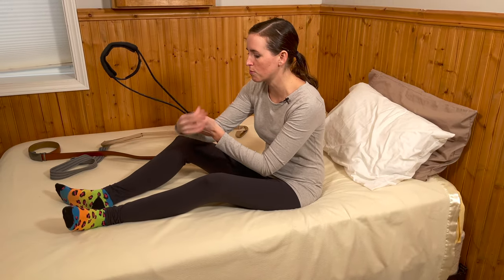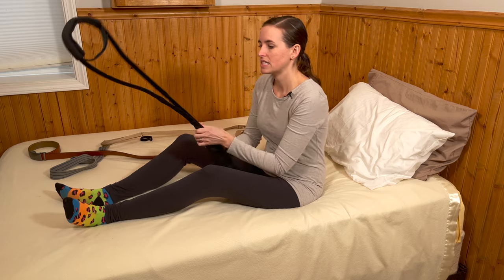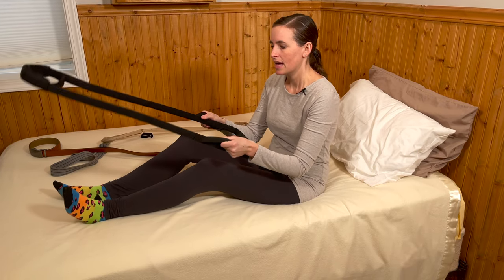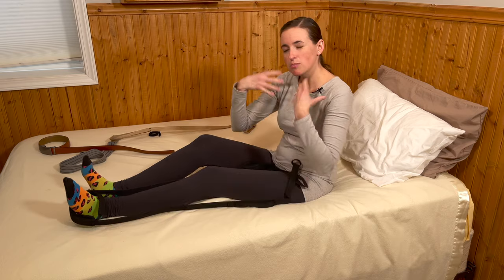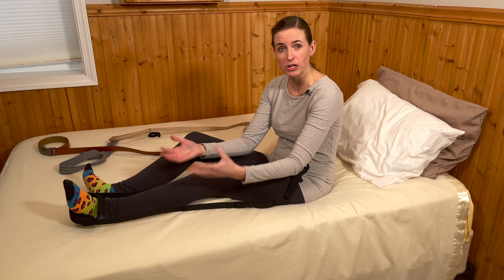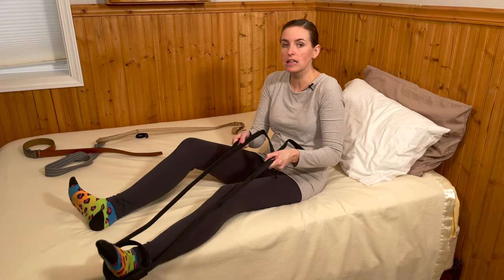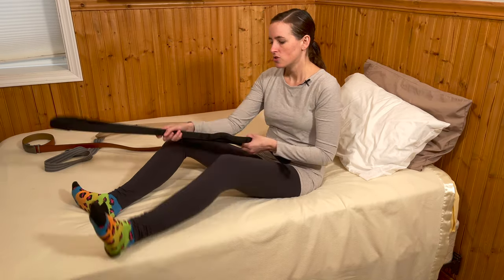What I really like is, if you remove this strap, this is what makes this product kind of unique — it separates and takes a different shape. It also has these additional handles down below, which I really like. Now I can use both arms to help with my leg. If you have some upper body weakness and your leg is particularly weak or heavy — perhaps it's full of fluid or very swollen — it's really useful to have two handles to grip onto and two hands to lift and move a particularly stubborn limb off the edge of the bed, out of the shower, or off the leg rest of your wheelchair.